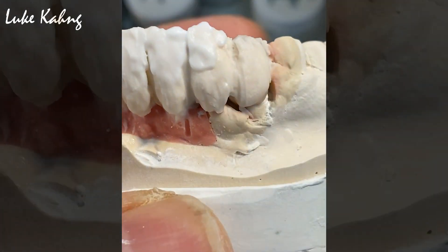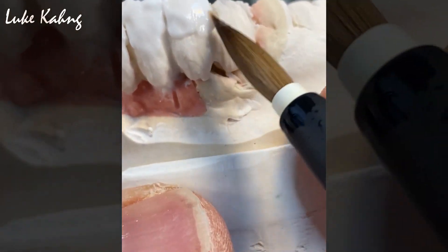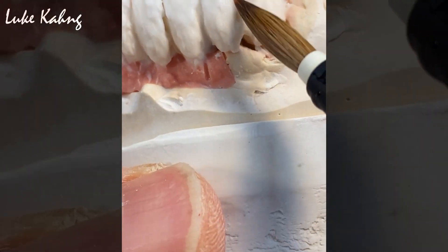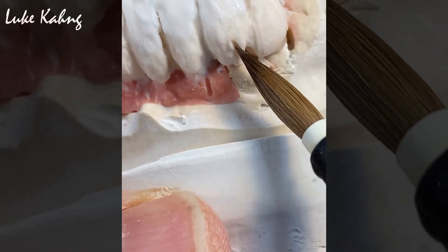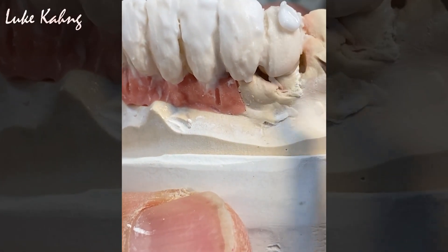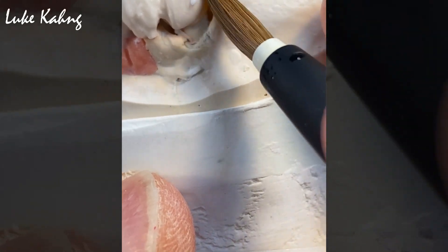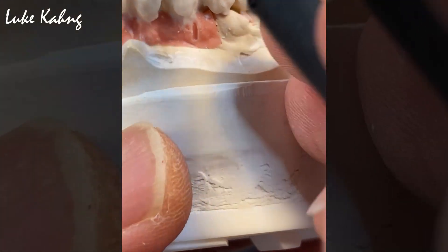Okay, so the highest point is here. Is it higher than that one? To get the good size of the tooth with the adjacent teeth — kind of little flat, just a little bit. Leave on for a little shrinkage, just a little bit. Add with the dentin as well, so it expands the cervical one-third size of the tooth. Okay, now this canine — lay it on top and the enamel booster. Okay, then it will be good. After this I'm going to cut it individually.